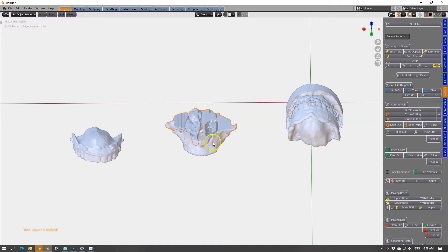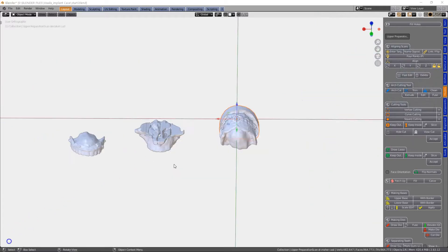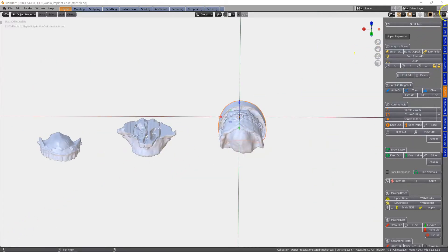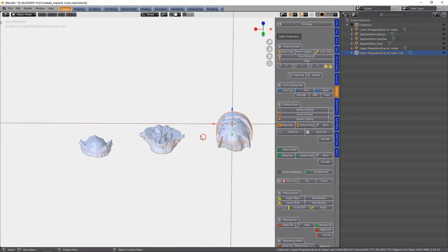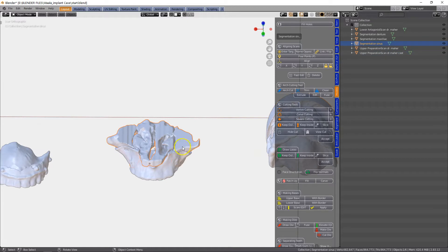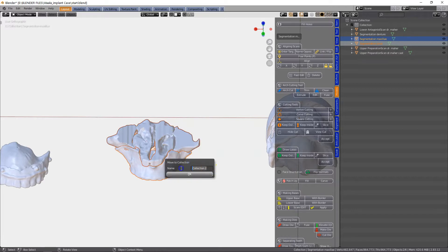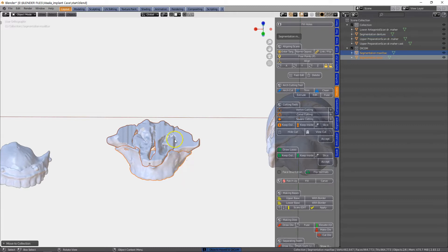In the model designer, click on lock — and this one, click on lock. All other items we can move. Object management always makes things easier. We do that by doing three things: putting them in different collections, using colors, and using names. This, for example, could go into a DICOM collection. So let us select both of these, move, and call this DICOM. Then we can easily refer to these in the future.